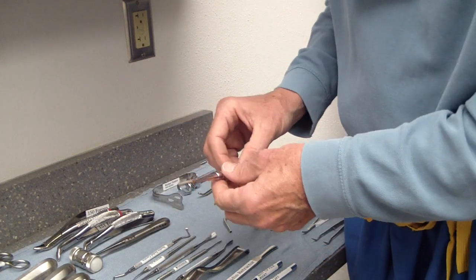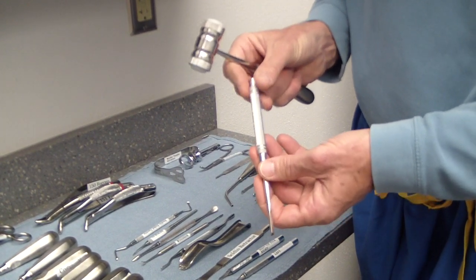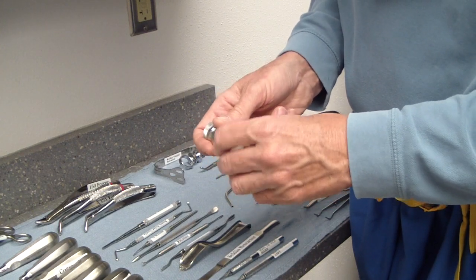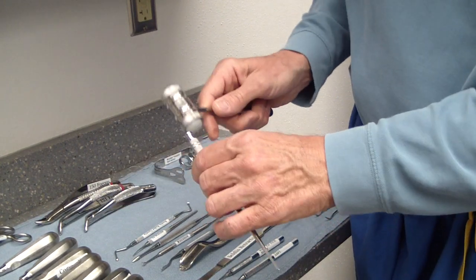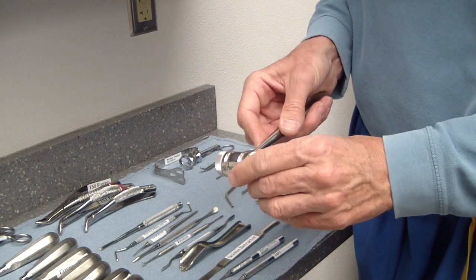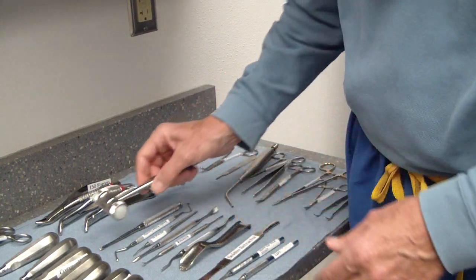This is a mallet and osteotome — some call it a hammer and chisel. It's a little heftier than your regular periotome. The mallet has a nylon tip on the end as a cushioning area; it acts as a shock absorber because metal against metal is really jarring on the patient. It also acts like skid protection so when you're hammering it doesn't slide off and hit the patient in the jaw. These nylon tips wear out over time, so I recommend ordering a couple extra sets right away and keeping them on hand, since the mallet itself will probably never wear out in your career.